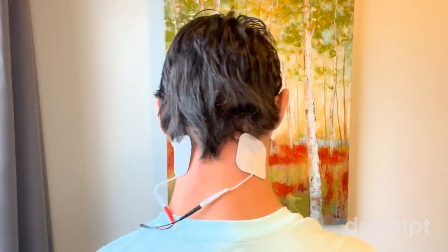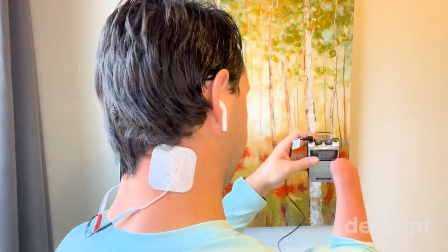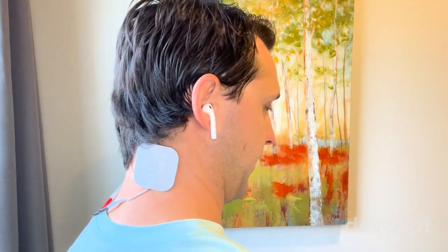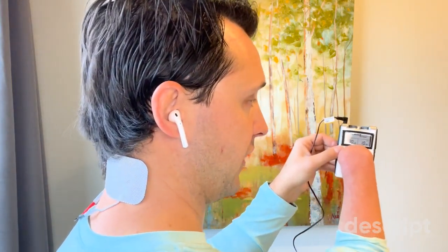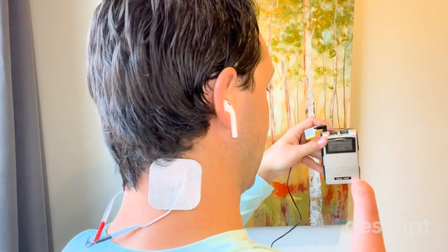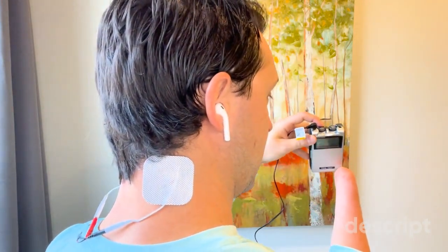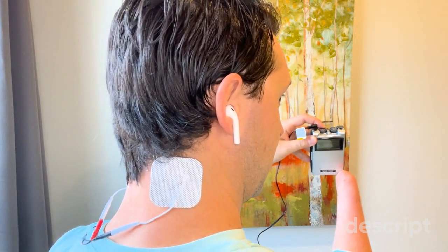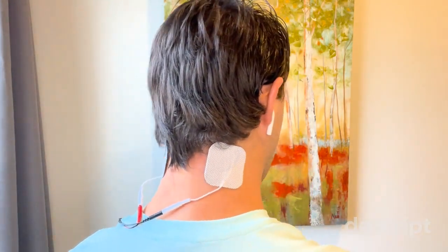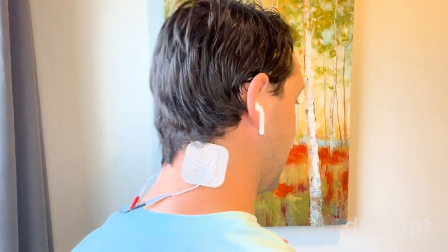It is hard to tell when you're doing this by yourself. Here's my device, the TENS 7000, and I just turn the dial to get it started — a very small turn to see and confirm the correct settings. The pulse width is 200 microseconds and I'm using a frequency of 100 hertz. My timer is set for 10 minutes, but you can go anywhere from 15 to 20, up to 120 minutes for certain conditions. I slowly turn the intensity dial until I start feeling the buzz — for me it's about a setting of three or four on this machine. It should stimulate a buzzing sensation: slightly uncomfortable, but never painful. You should be able to tolerate this for as long as the treatment requires.